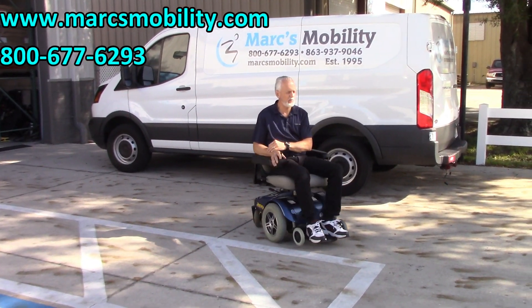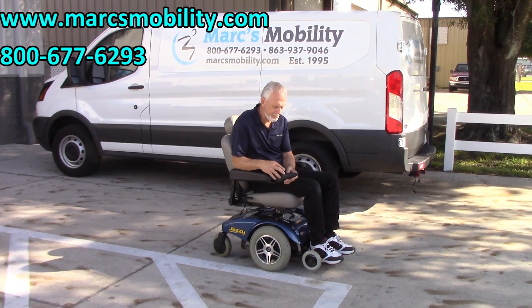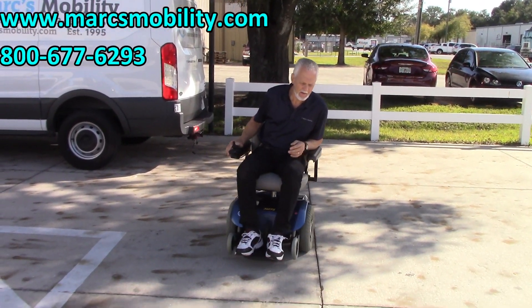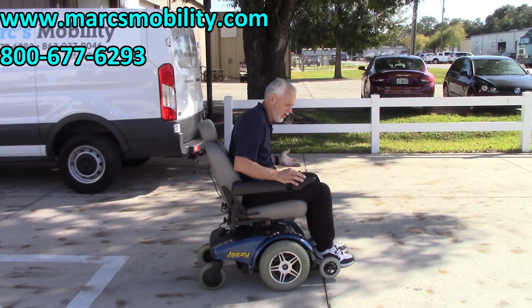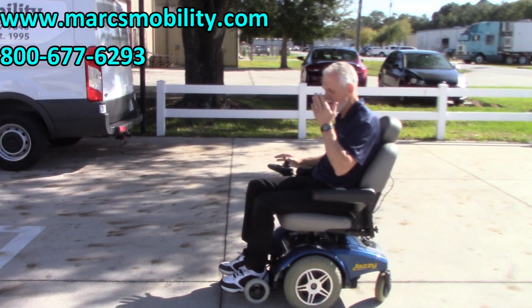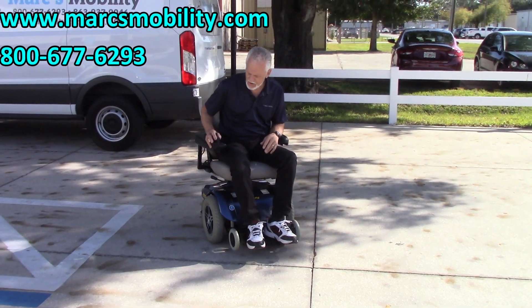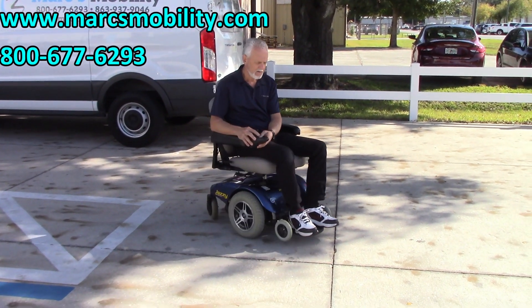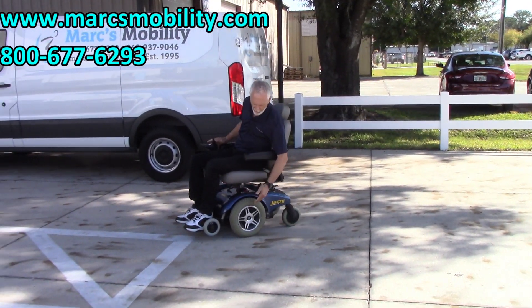This is actually a pretty nice little power chair and it's very easy to drive. Even though I had it on the fifth speed, it has five speeds. On speed number one it's slow, but if you want something that's real easy to turn and doesn't jerk you around — if you have a loved one who's a little skittish — this chair on speed three is very easy to drive, very easy to maneuver, and very comfortable with 14-inch tires.